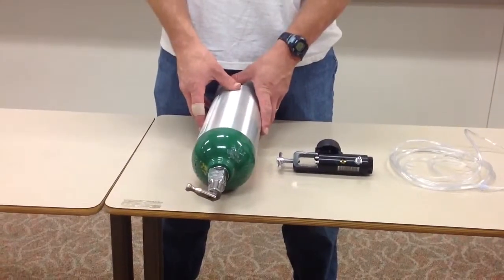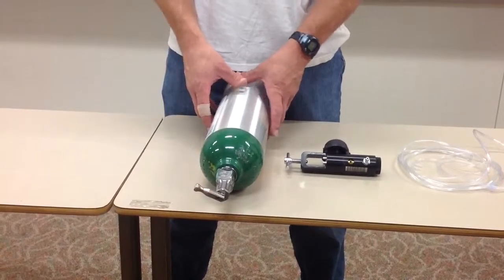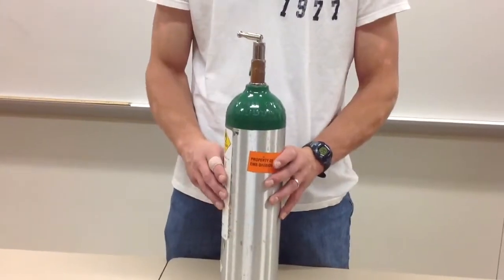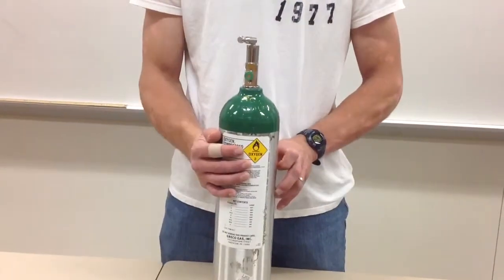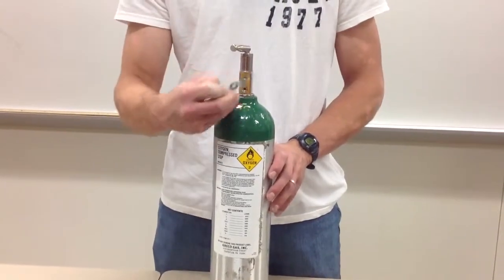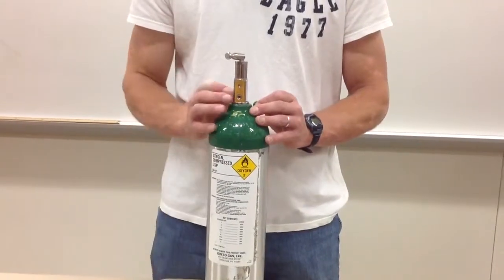I'm going to show you how to properly administer oxygen via the nasal cannula, but first you must set up your oxygen tank. Initially, select the desired cylinder and make sure that the label reads oxygen. If it is a new tank, you'll see that the O-ring is attached on the cylinder. Remove the O-ring until it's needed for the regulator.